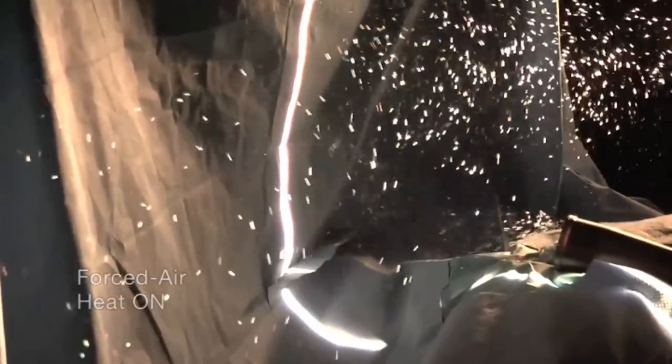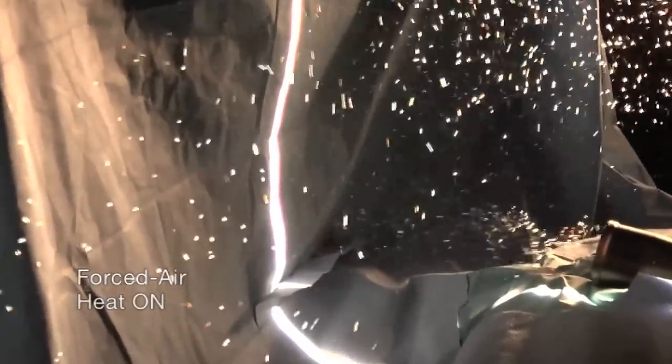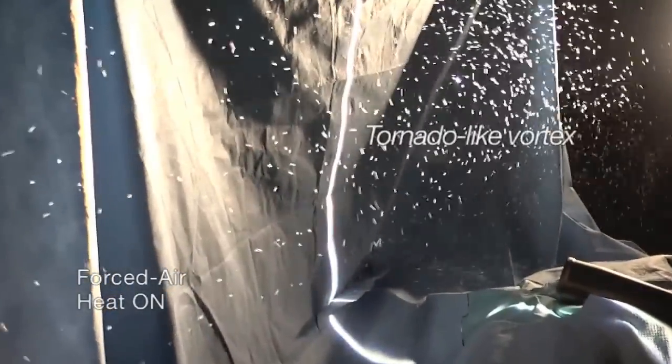With the heater on high, the heat radiating through the drape energizes the air in the dead zone causing it to rotate forming a vortex, essentially a tornado.